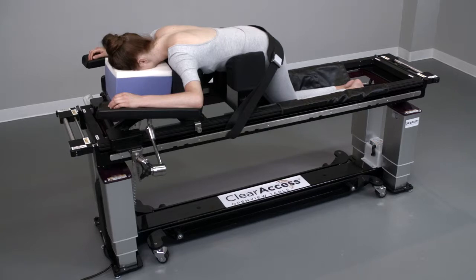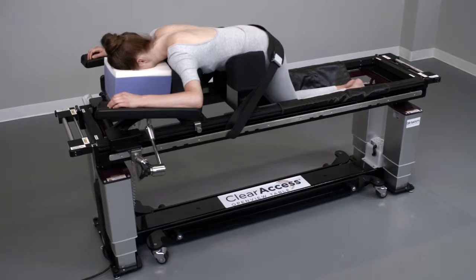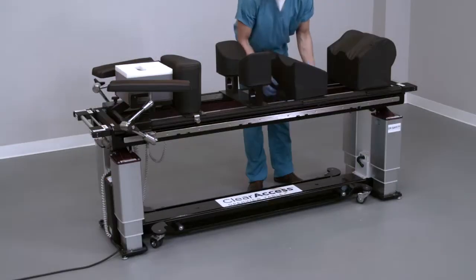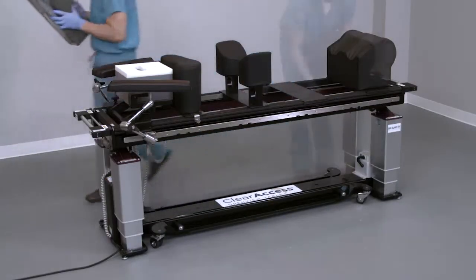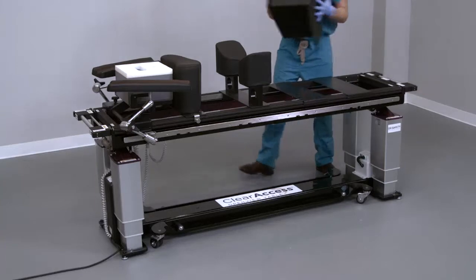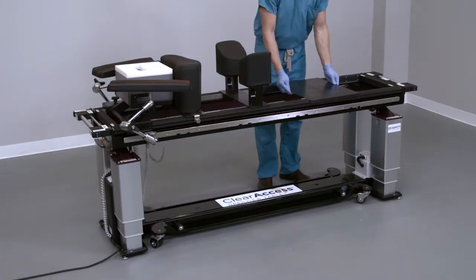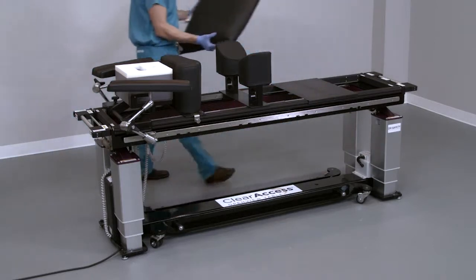Surgeon preference or certain types of posterior procedures may require alternative leg management options. If it's desired to position the lower legs on a flat surface, this can be accomplished by removing the thigh pad and ankle rest, pushing the carbon fiber supports together, and covering with a pillow or gel roll.